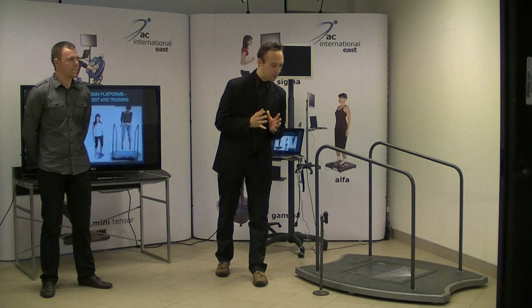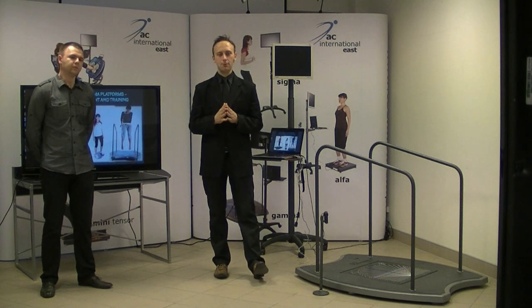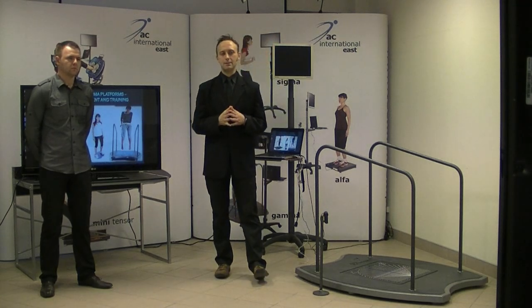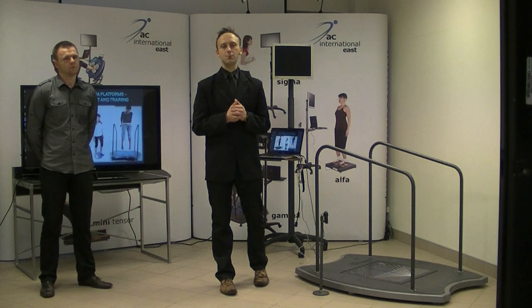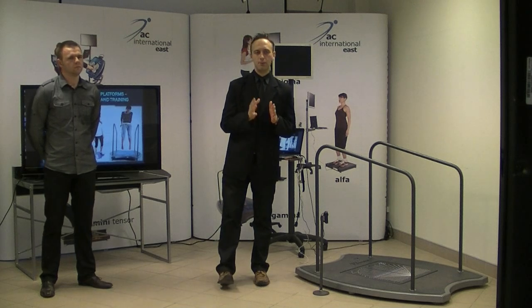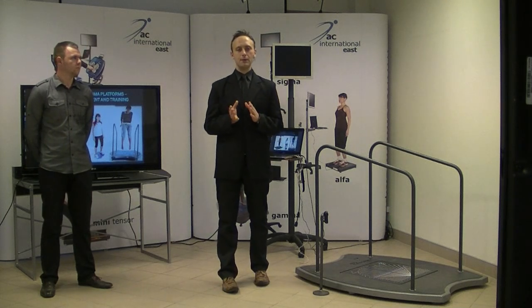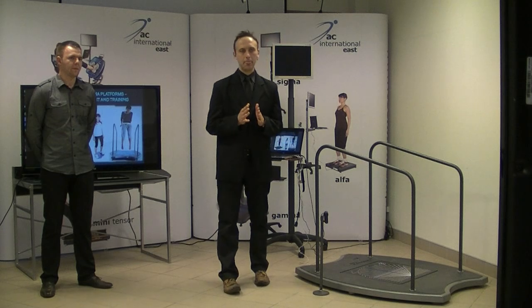But before going to the practical sessions and before talking about the software and the components of the platforms, it's very important to know the key points of using the platforms, especially the Alpha, Gamma, and Sigma platforms. So first of all, we have the restoration of distributed neuromuscular function. We also use the biofeedback. The biofeedback features improve the proper load distribution, load shift between sides, movement of body weight, also the pelvis stabilization and the activation of the weaker side of the body.